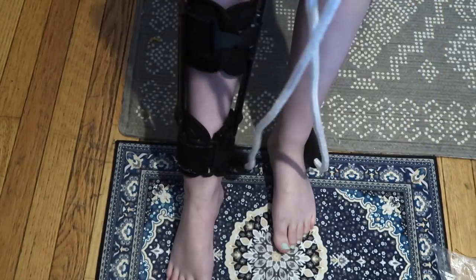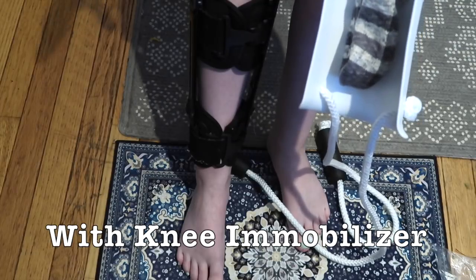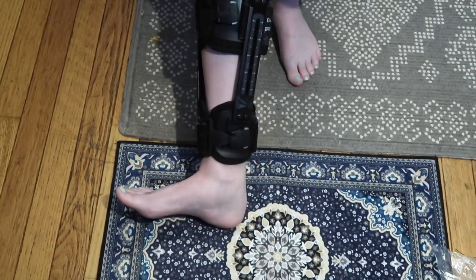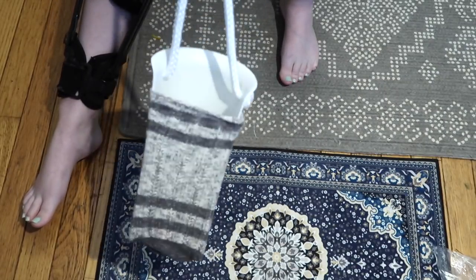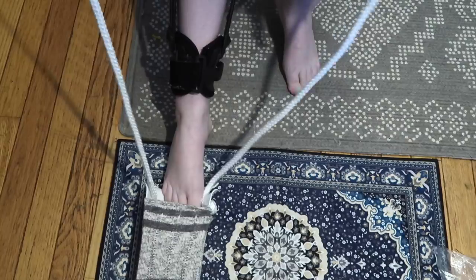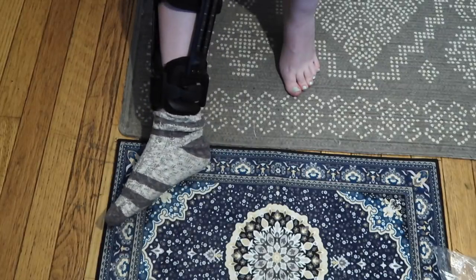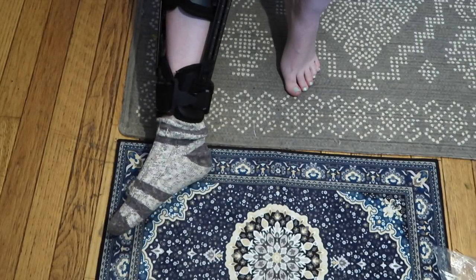The second test is how this is going to perform when my leg is in its immobilizing brace. If you watched my last video, the sock slider did get it on, but not perfectly. And the sock aid — obviously I had trouble since I was doing it wrong. So I'm really curious to see if this could actually help me. My leg is now completely immobilized — I can't bend it and I can't reach and touch my toes. One thing I still really appreciate about the sock slider is that it comes with that little handle, which makes it so much easier to place it where you need it to go and hold it steady. Got my foot in here — just going to pull up. That was so much easier than before, and much easier than the sock slider.